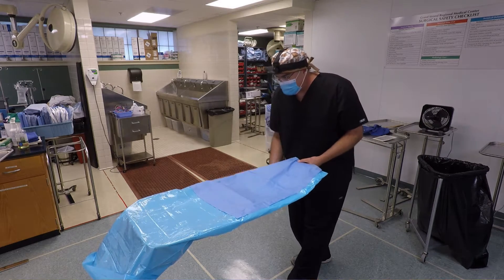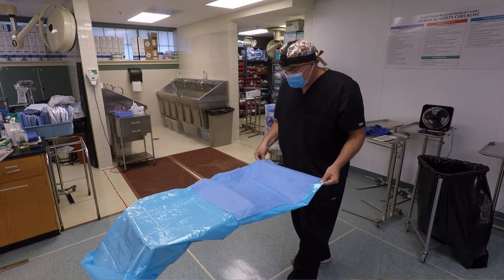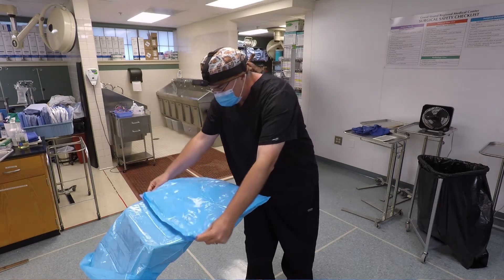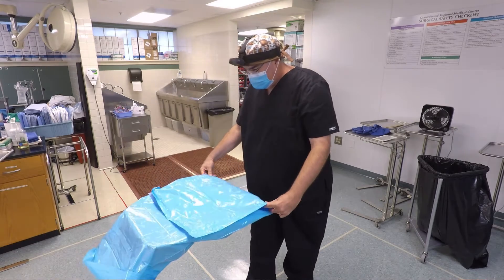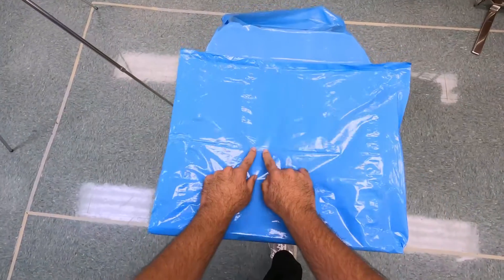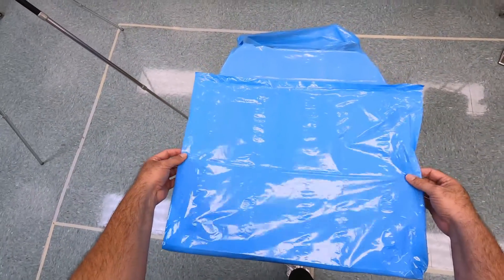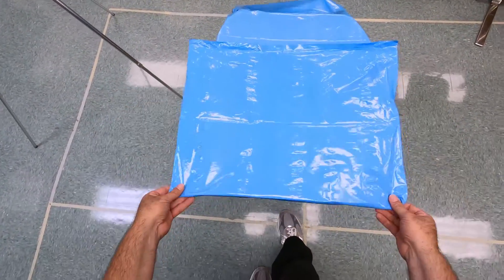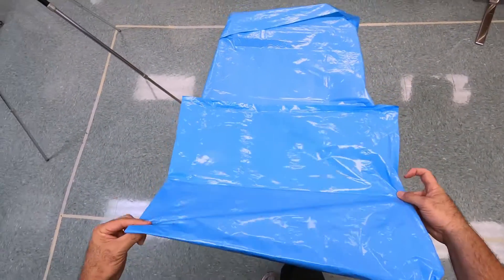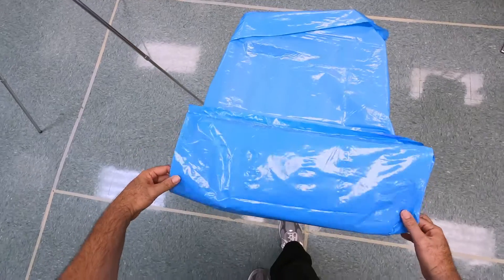That one we're going to fold up — all of our folds are going to go up. So the second crease, I'm going to fold it up and straighten that out. Now when I look down I see another crease; it's telling me this one is also going to go up. So I'm going to take this, drag it only one segment, and on this crease fold it up as well.